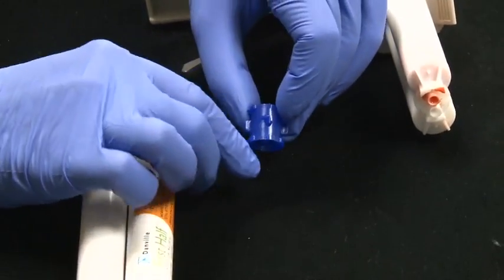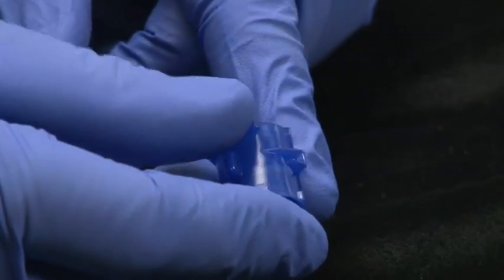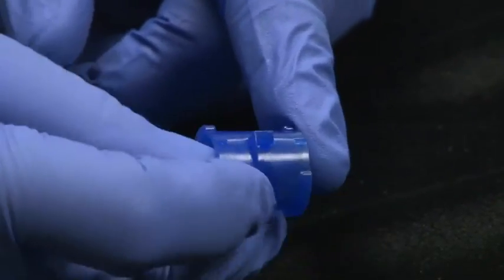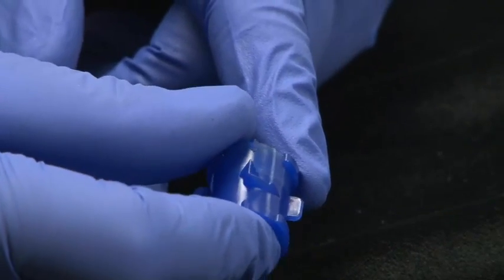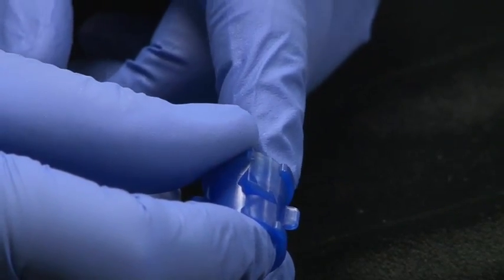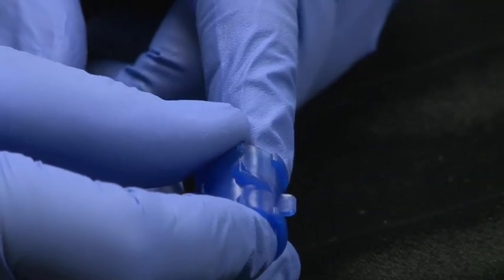Now if you look carefully at the Lock and Reload, you'll see an arrow on here that one is pointed down. I'm going to flip that over so it's pointed upward.